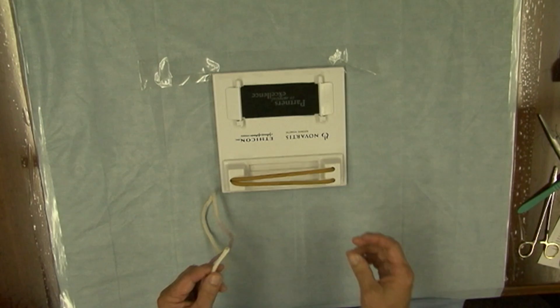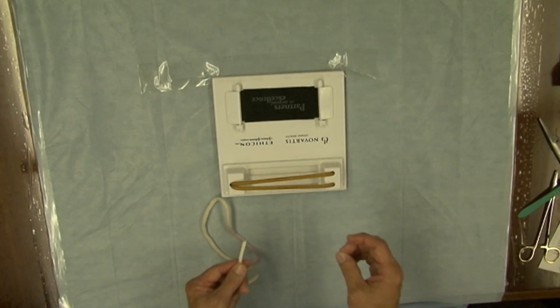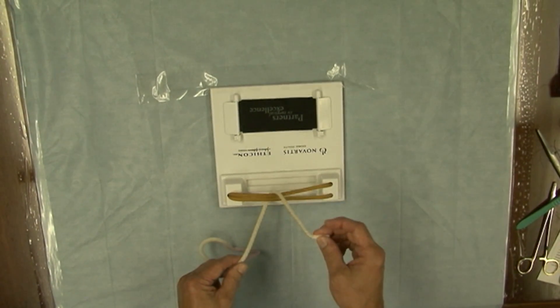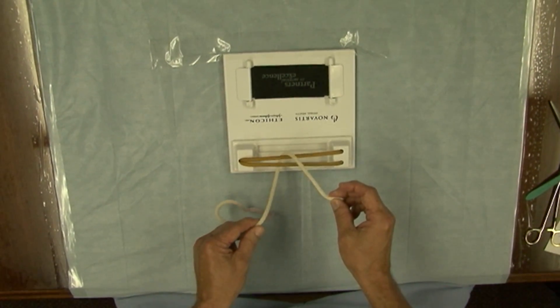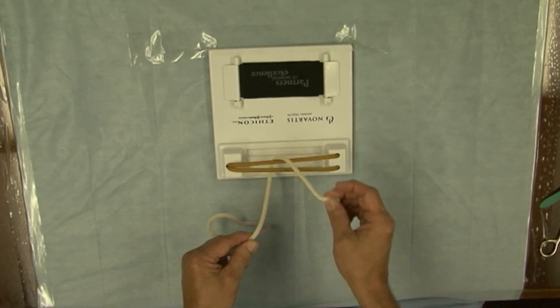However, to practice it's really important when you first start out to understand that depending on how the suture is looped around the tissue that you're tying will determine which throw of a knot that you're going to create first. Please recall that a knot is comprised of two throws.